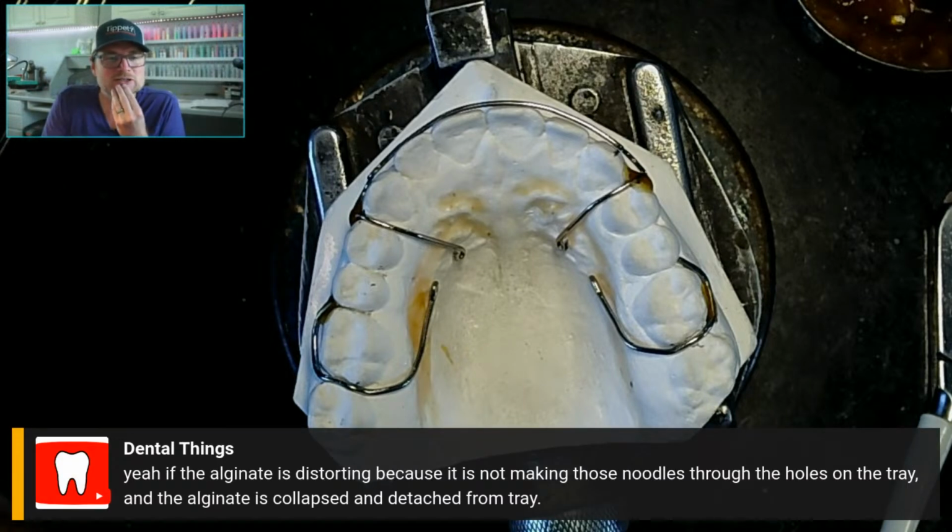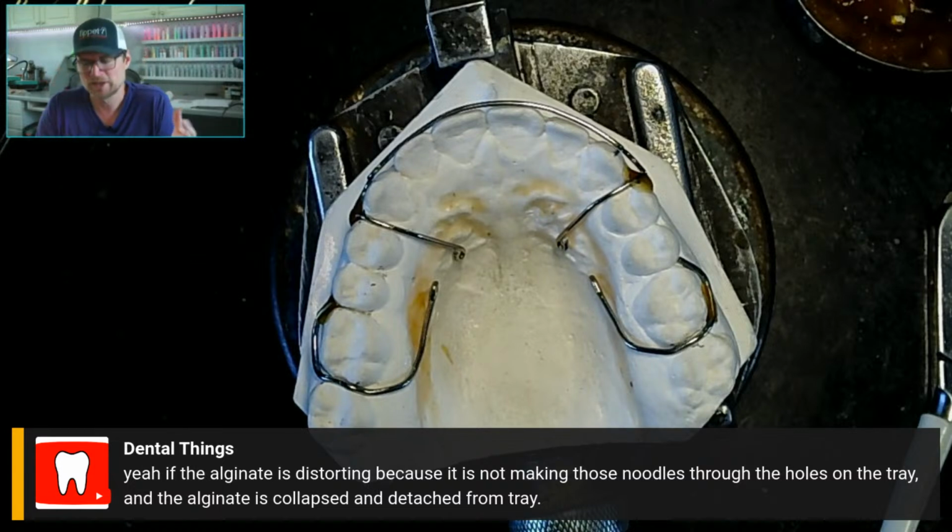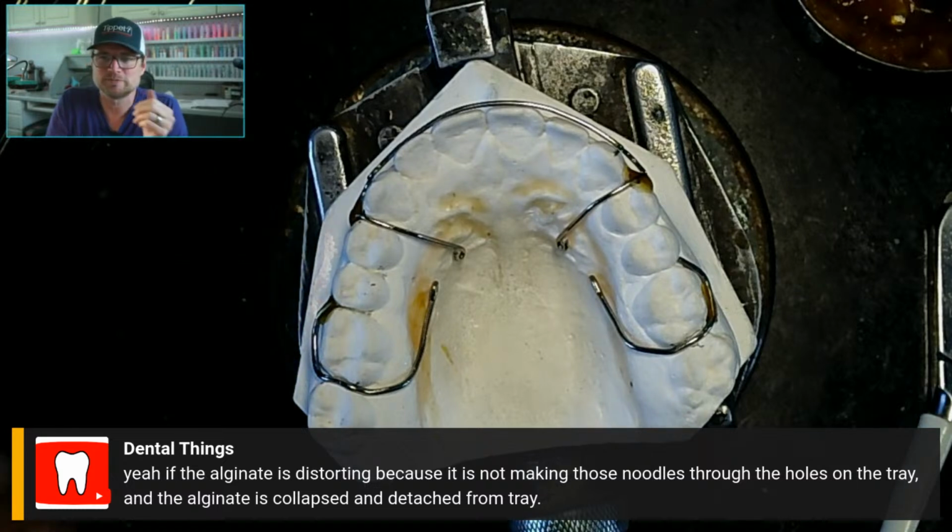Yeah, if the alginate is distorting because it's not making those noodles through the holes on the tray, the alginate is collapsed and detached from the tray. Okay, I was trying to get to that. I didn't think about it making the noodles through the tray. Some of those trays, like metal trays, have you seen those solid ones? They don't have those holes in them for retention. It was pulling away from the tray and collapsing. I did think maybe the incisal edge of the impression was breaking, and it was, anyway.